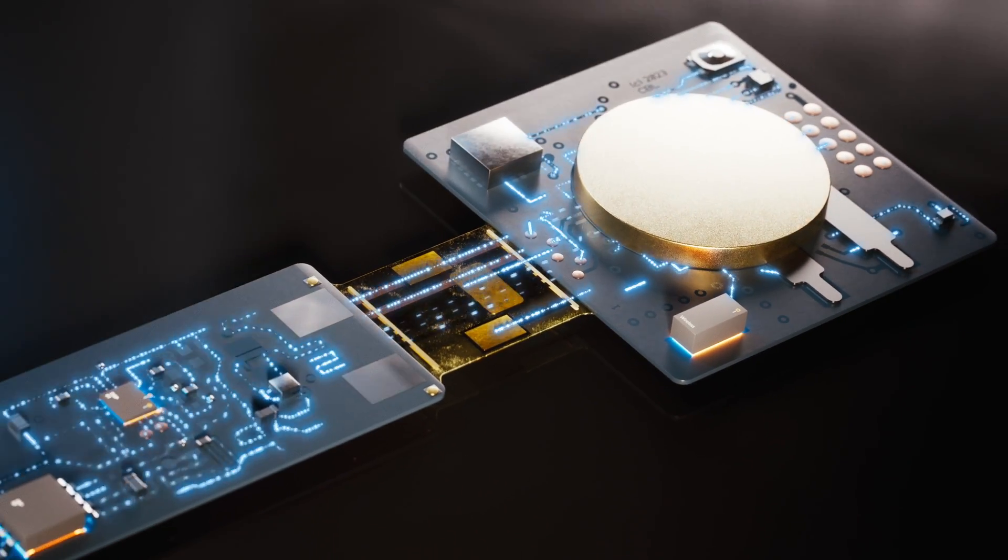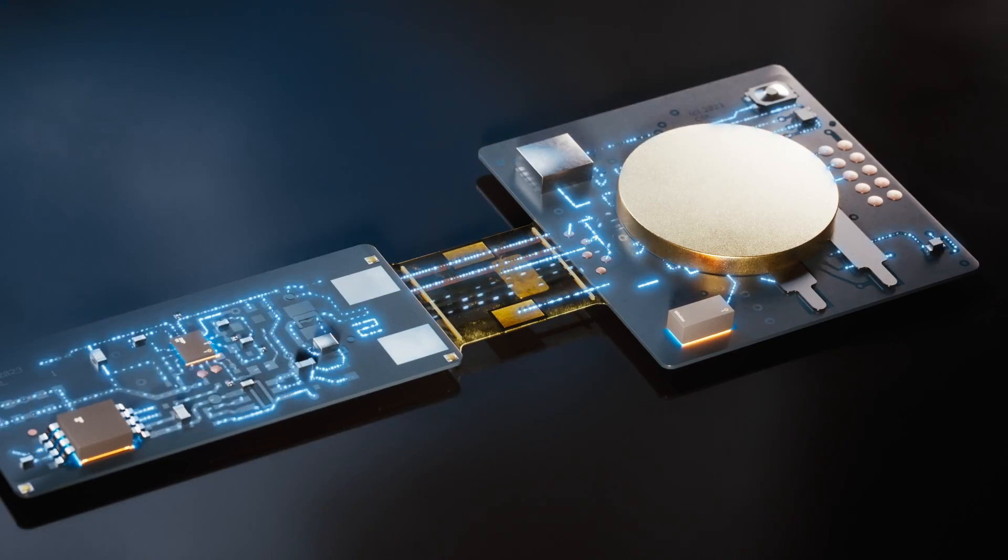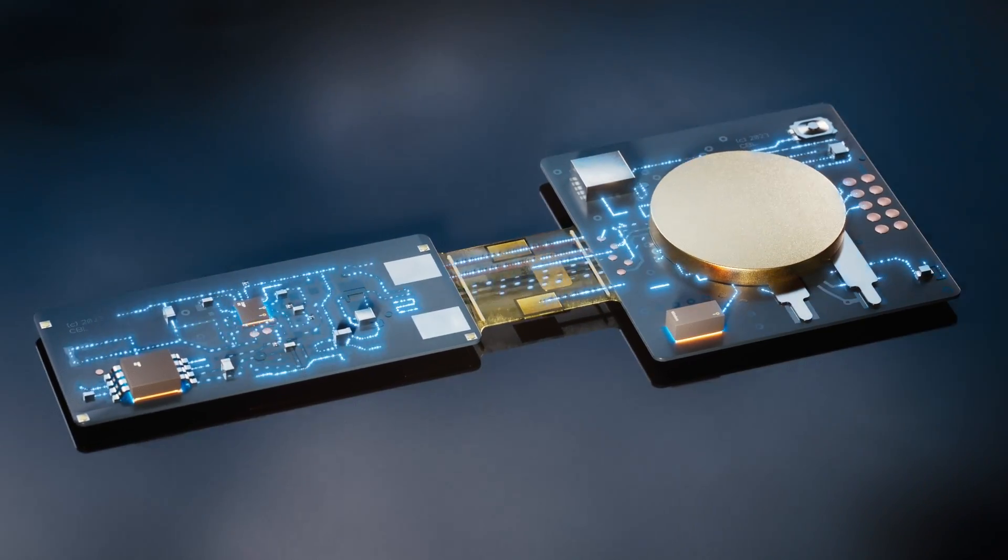Introducing the NeuroStrip by Control Bionics, the universal machine for physiology, 20 years in the making.